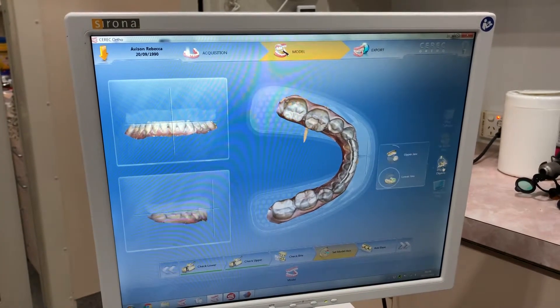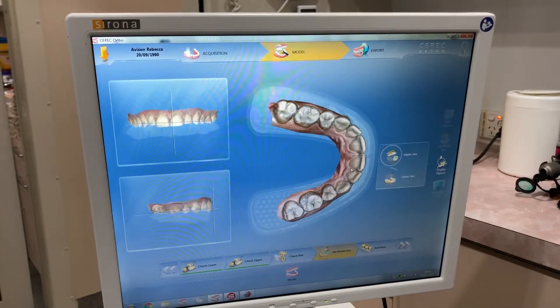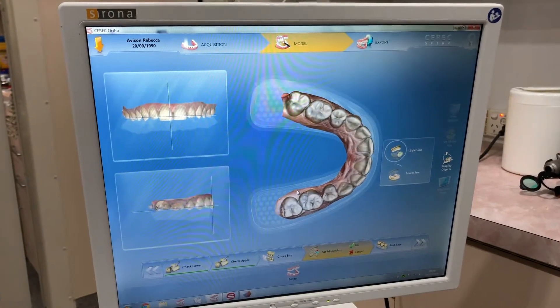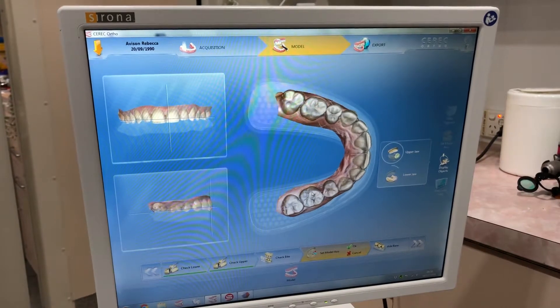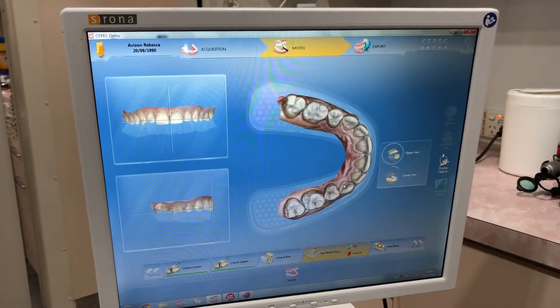When setting the model axis, I like to set it relating to the upper teeth, not the lower teeth. I set it such that the palatal aspect of the incisal edge is at the T line.